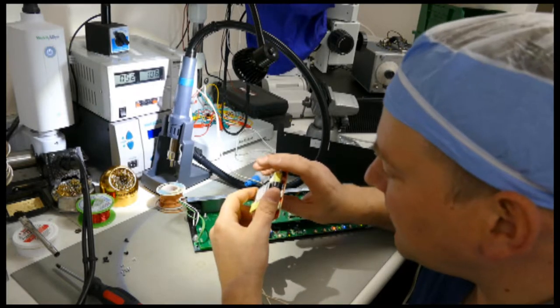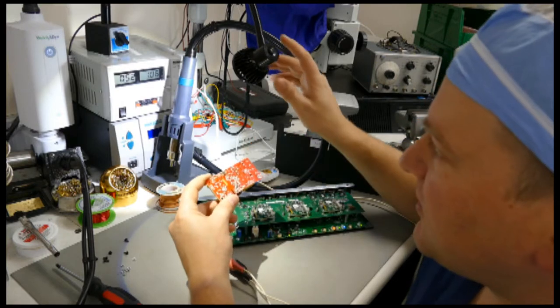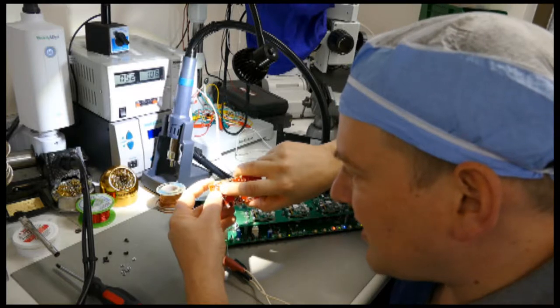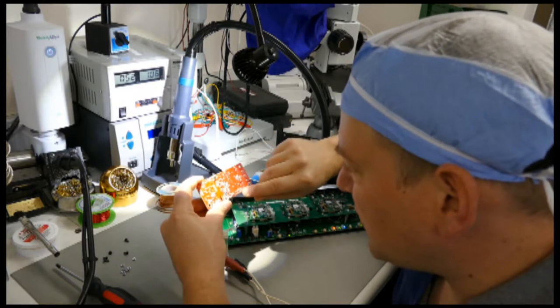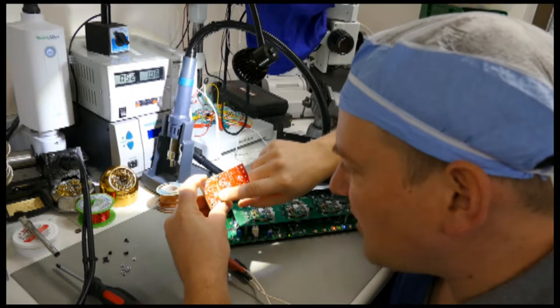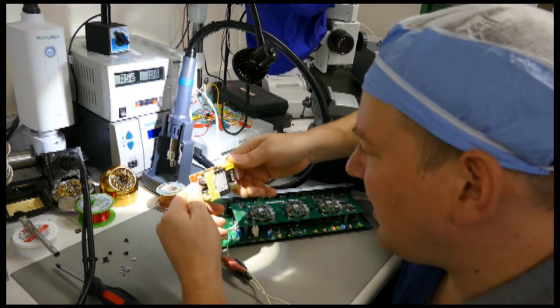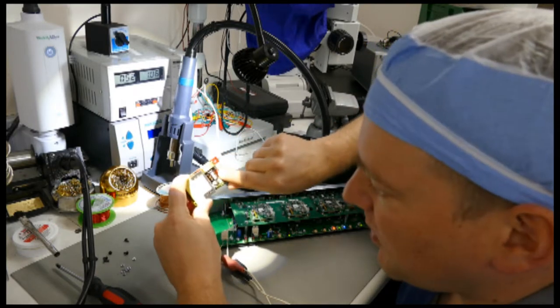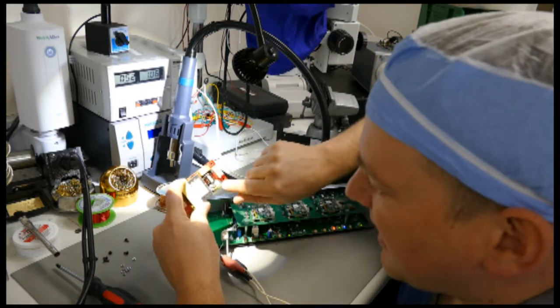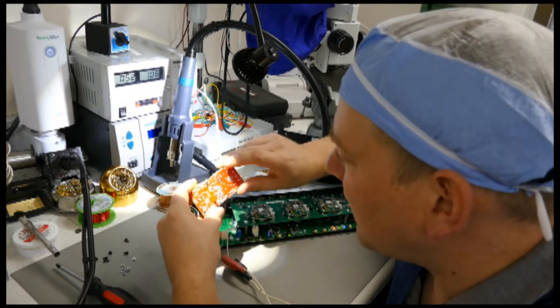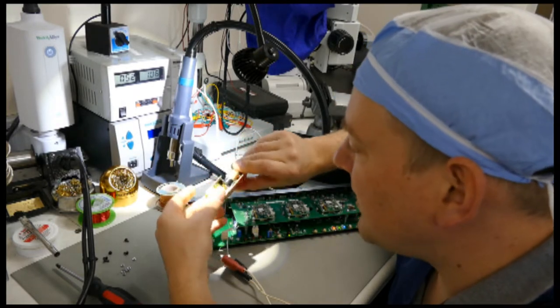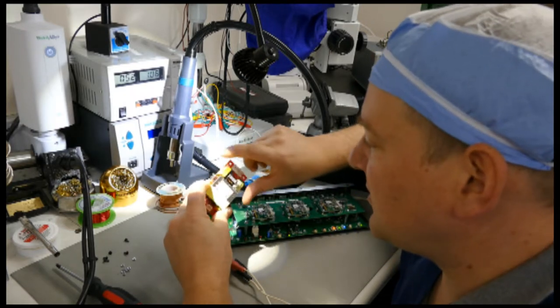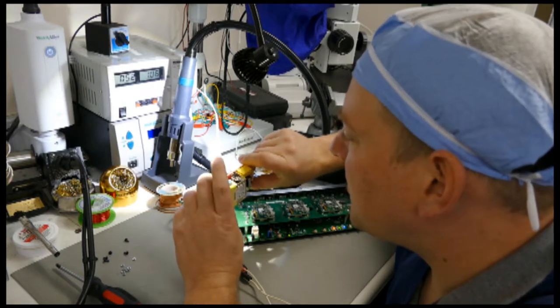And I don't really know what they do. One of the big tell-alls for this situation is going to be that you can see some of the resistors are put on kind of sloppily. They're just kind of thrown wishy-washy, however they want. They're not really square. That tells me that the robot was pretty quick when it placed components on there. You can see some of the other components are at an angle, which tells me that they're just kind of thrown in there real quick. So even though this is considered a medical-grade power supply, this is almost certainly the issue is manufacturing. Maybe cheap components.